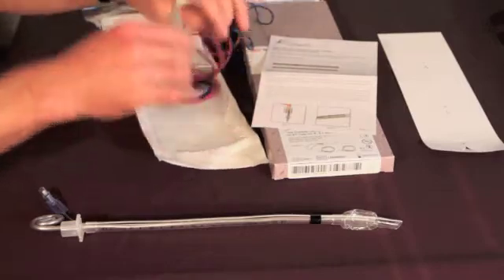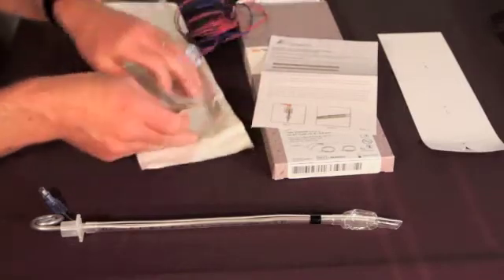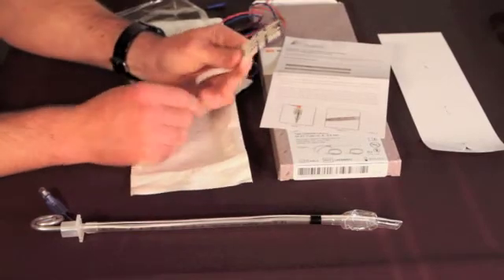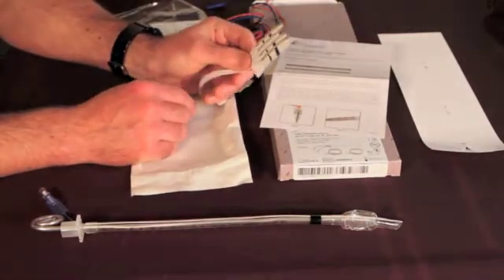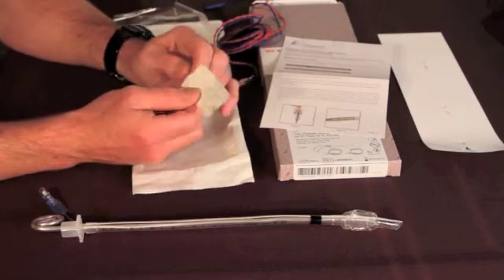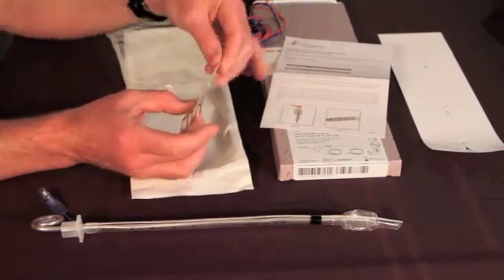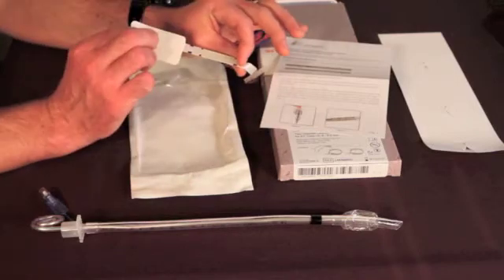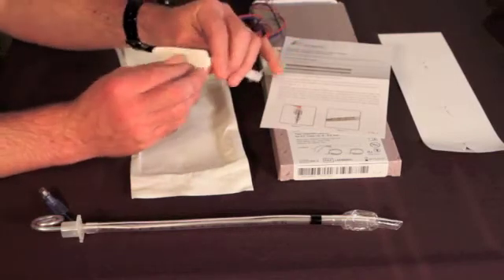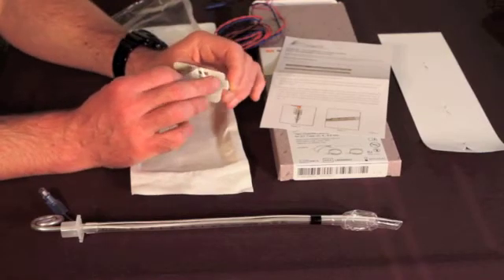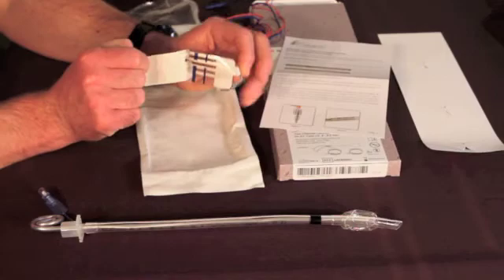Once I have uncoiled the wire, I can turn my attention now to the electrode itself. What I'm going to be doing is grabbing the electrode here at its base where it connects with this tail, and I will be pulling back a little bit to expose the release liner and separate it from the adhesive back.